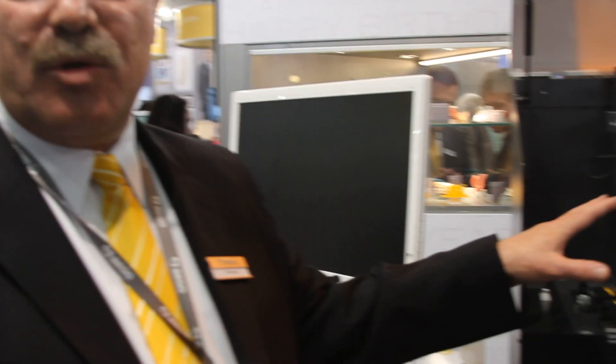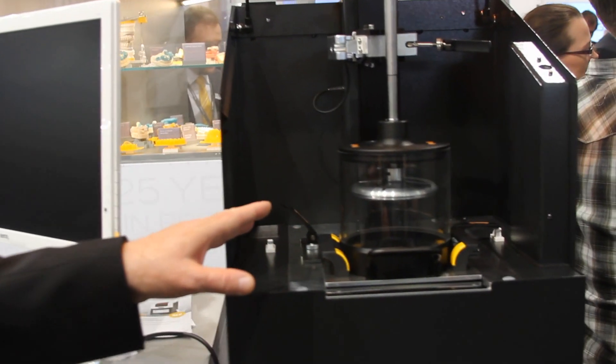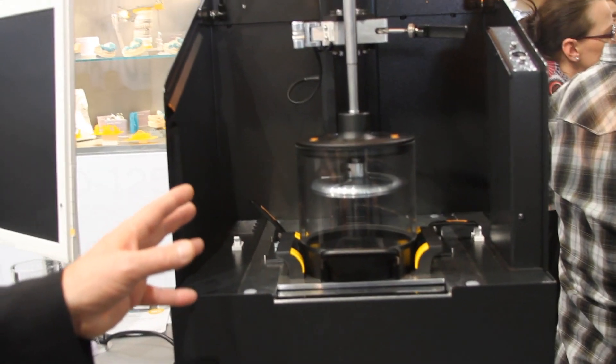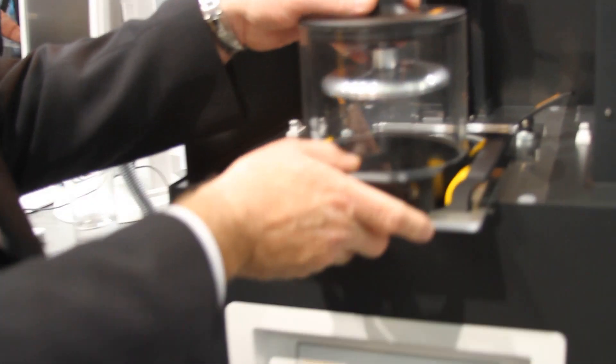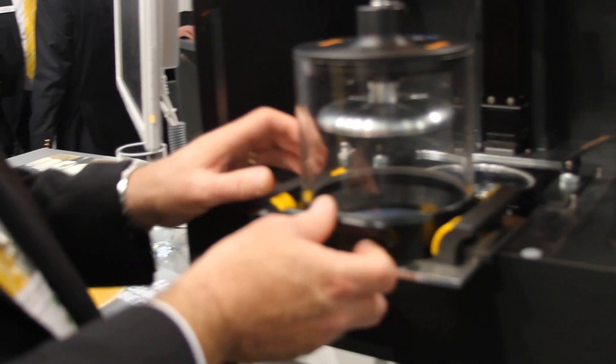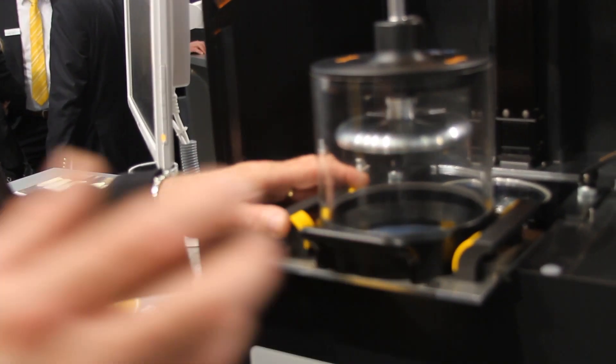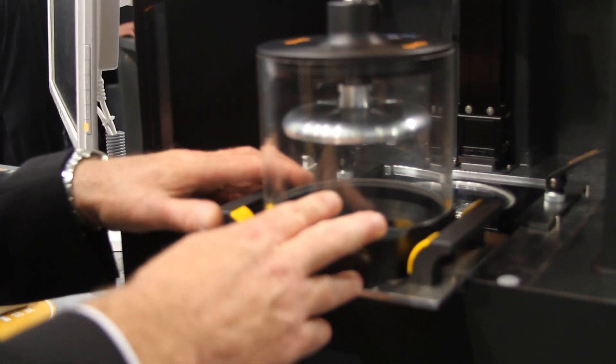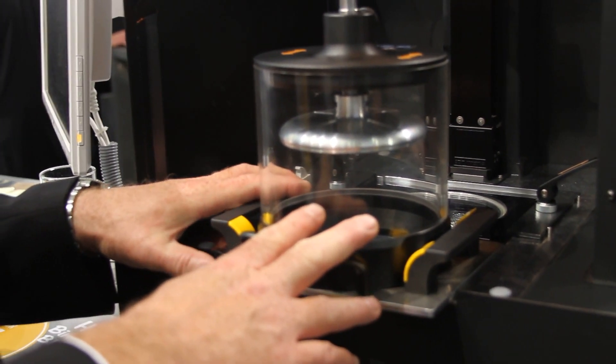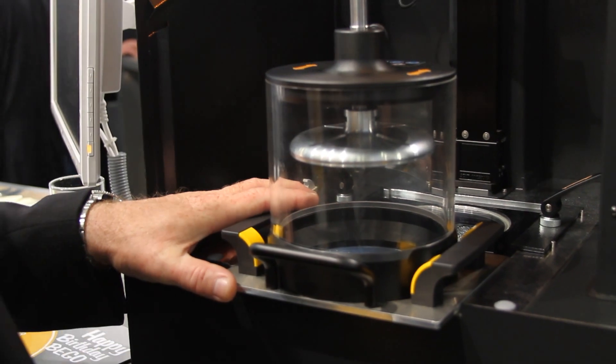I'm going to go through this quickly. It's a very user-friendly machine from the laboratory. It's got an unlocking mechanism - there's only one way in, one way out. It's resin-cured material, so the light inside is designed for about 20,000 prints minimum. You could get a lot more than that.